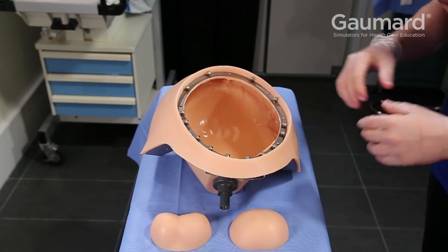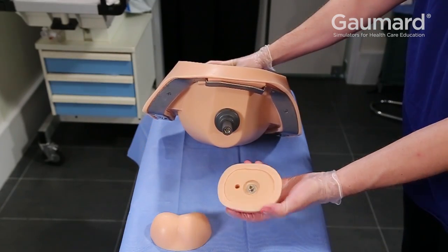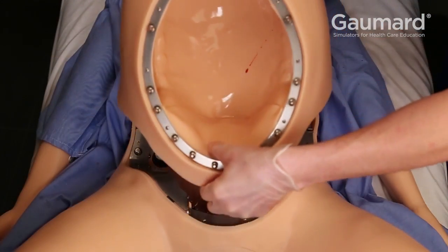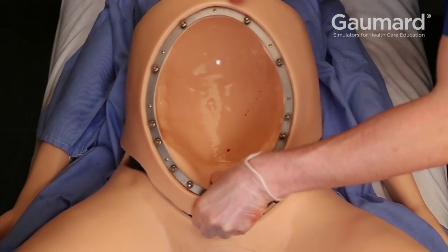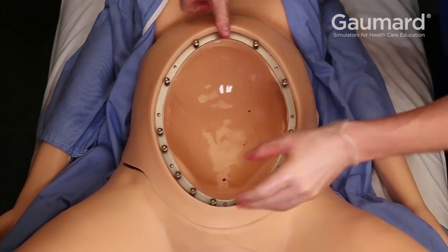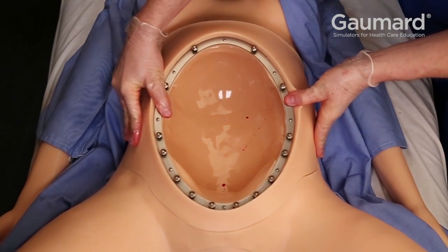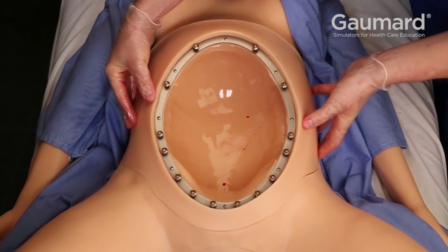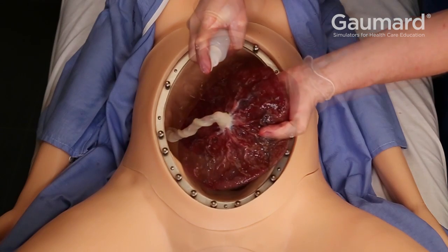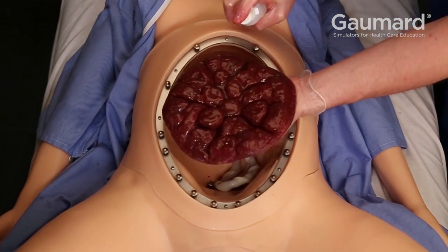Decide the orientation of your birthing baby and install the appropriate palpation insert into the receptacle under the abdomen. Insert the abdomen into the torso. Be careful not to dislodge the palpation insert from the receptacle. Use mineral oil to lubricate the placenta and umbilical cord.